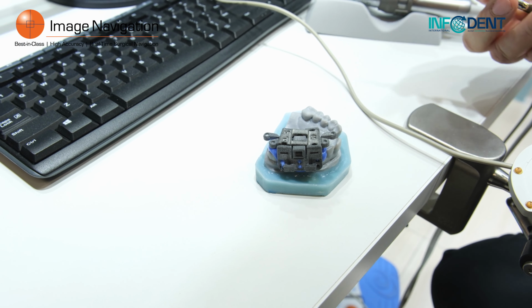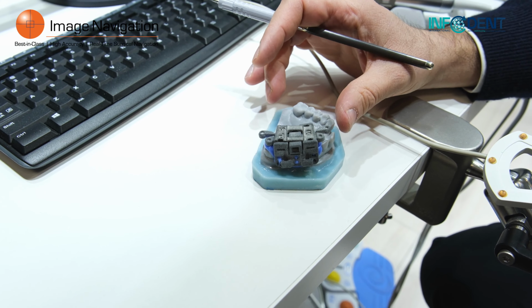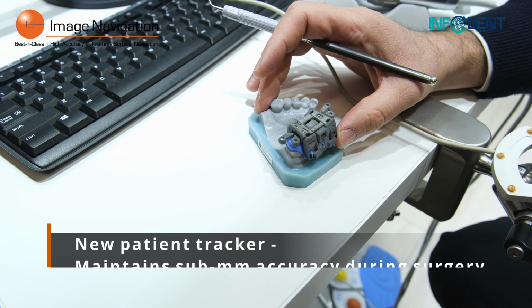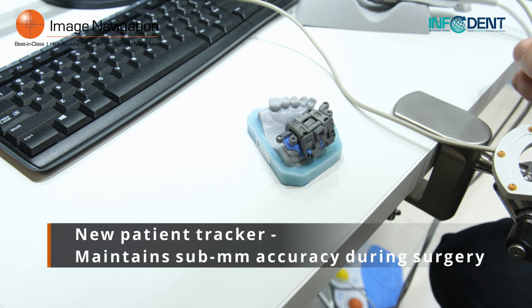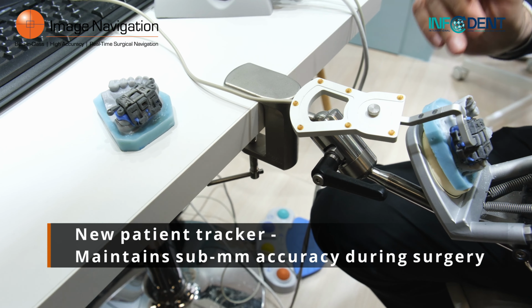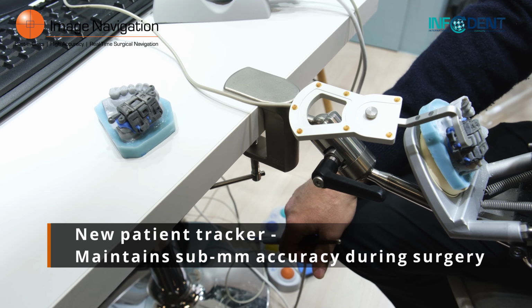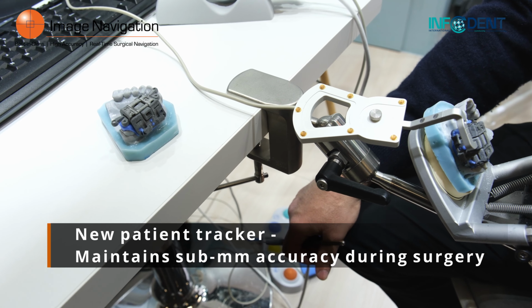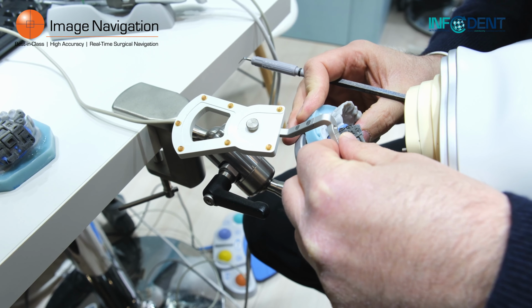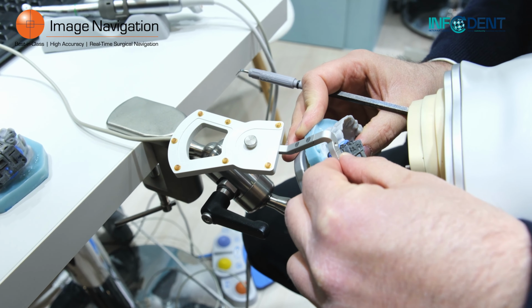The second improvement we accomplished with this generation of IGI is our new way of holding our patient tracker. As you know, our system has an accuracy of less than 1 millimeter, but in order to keep that accuracy, we want to make sure that the pole doesn't move during surgery, because if it moves, it will throw off all the accuracy of the system.